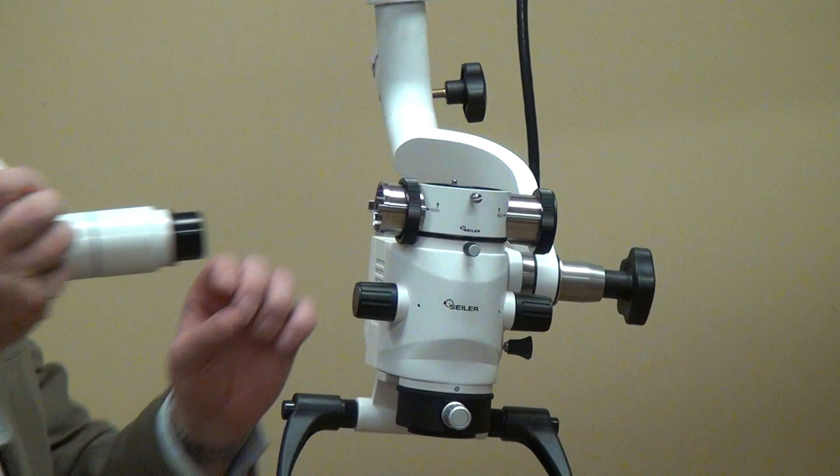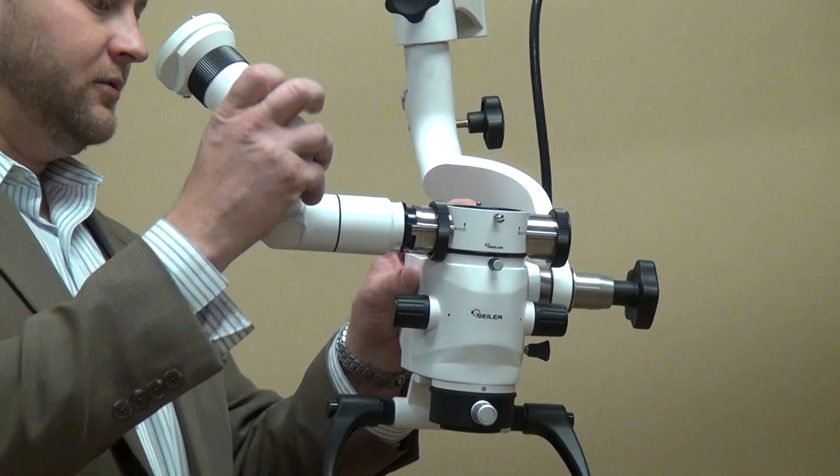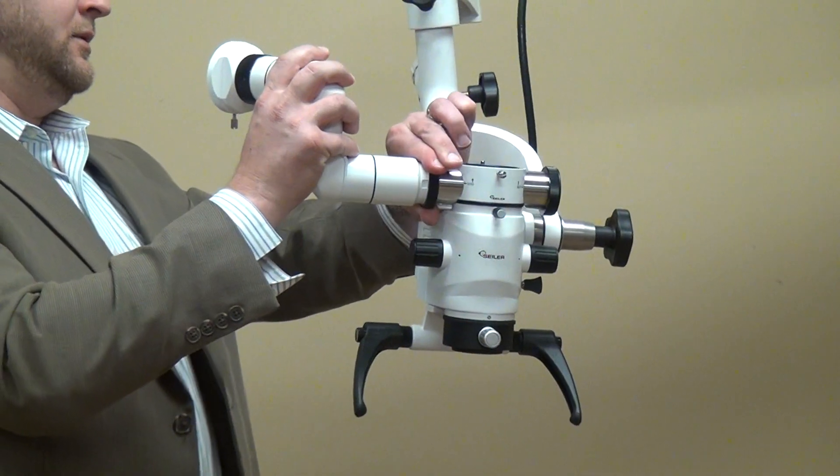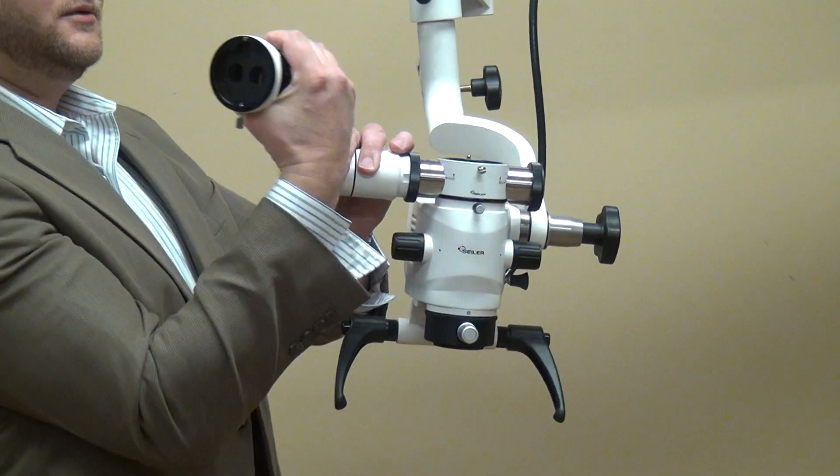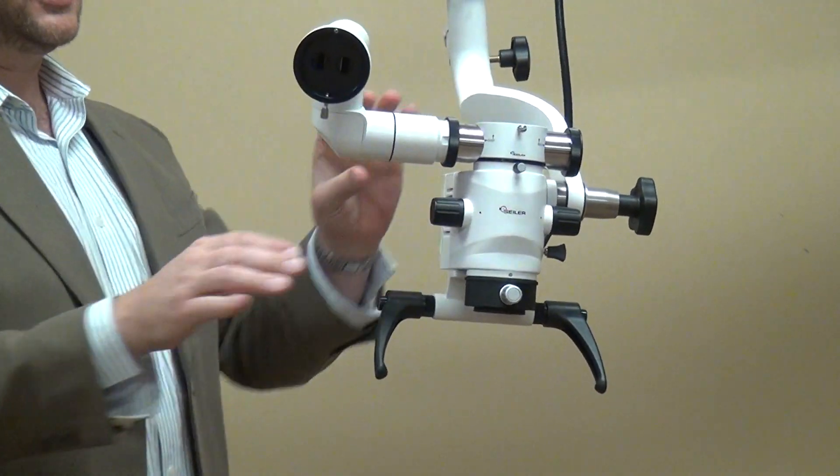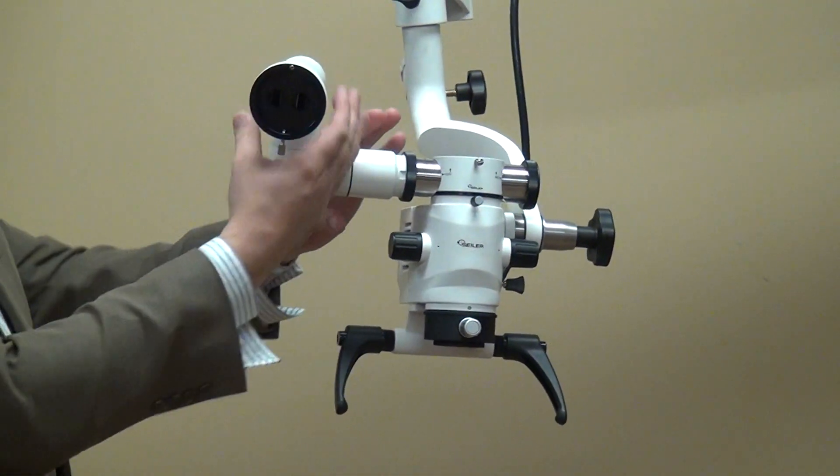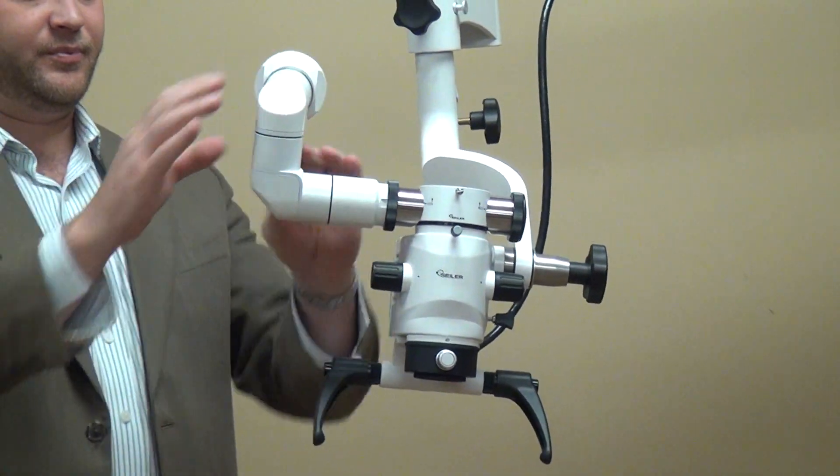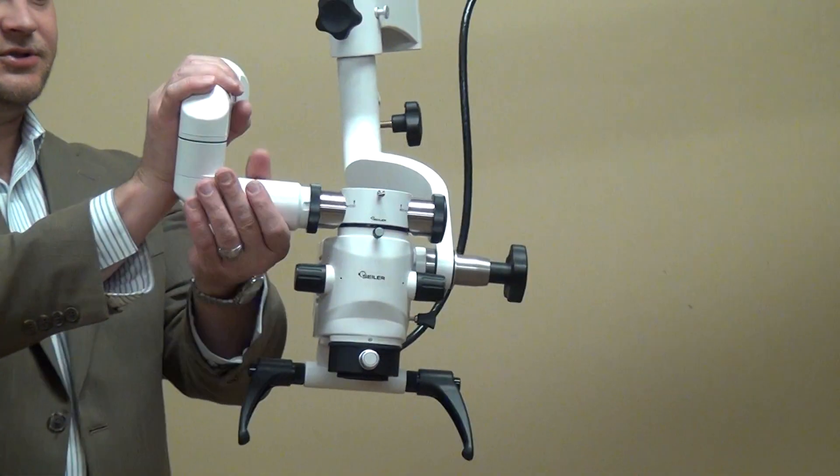This is your tube coupler. The nice thing with our tube coupler is you can manipulate the head to really any position that the assistant wants to see. So surgeons like to have that.